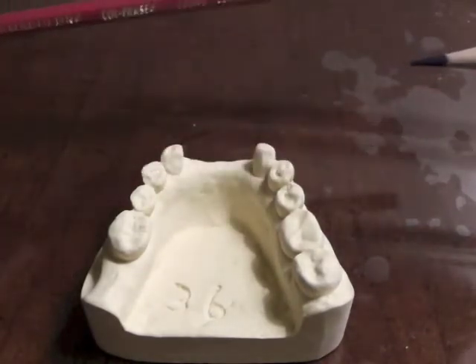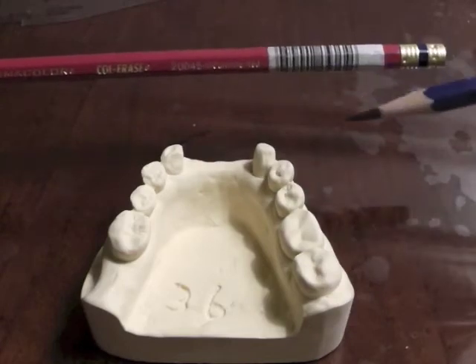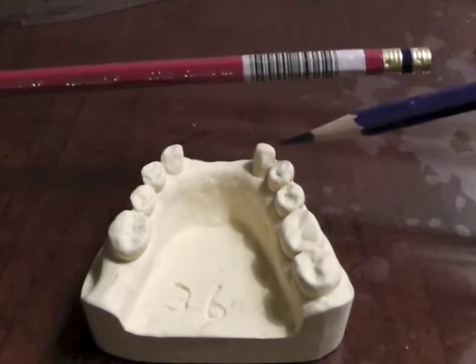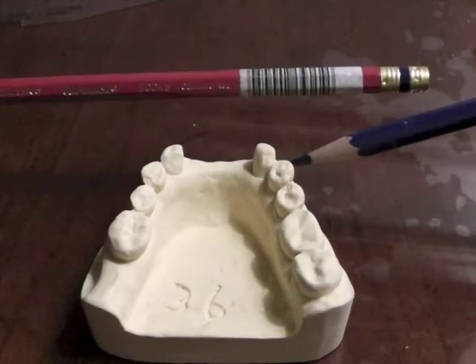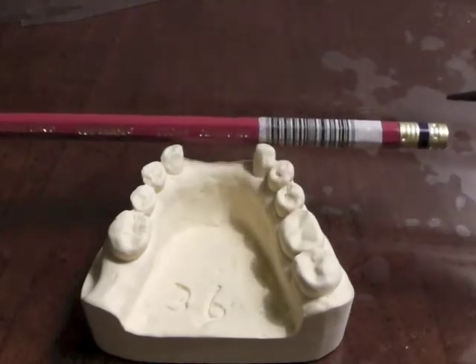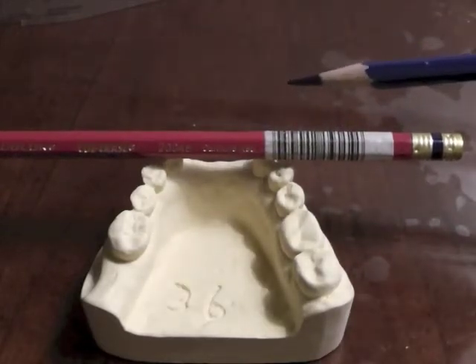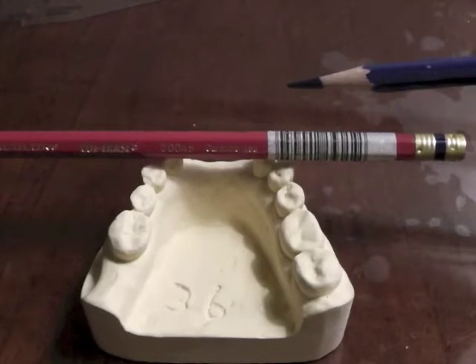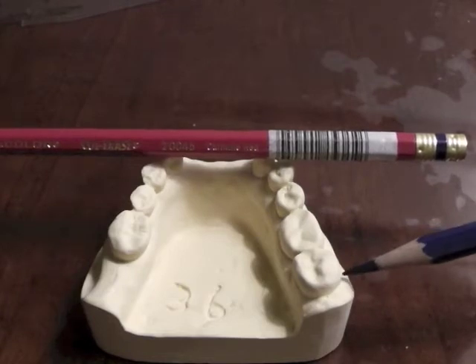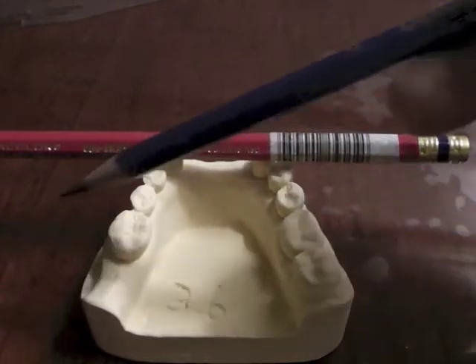When we think about this cast, we're going to look to see whether we have retention on the canines — on the mesiofacial — that would be the farthest place mechanically that we could get retention. But we might want to consider for aesthetics going to the mesiofacial of the two first premolars, so we would not see an ugly clasp on our canines, and we're still pretty close to that fulcrum line. Then on the posterior area, we'd look at the distal lingual or distal buccal of our second molar, or the distal buccal of our first molar on either side.